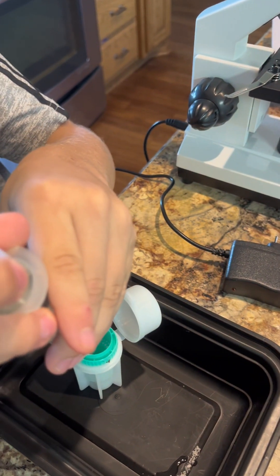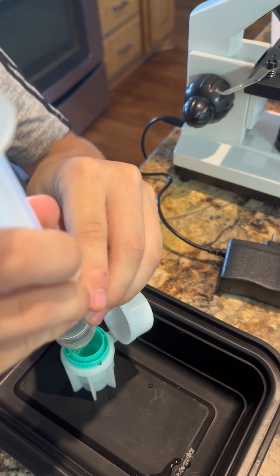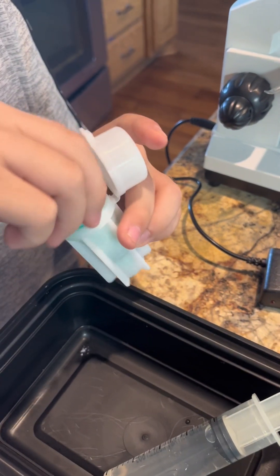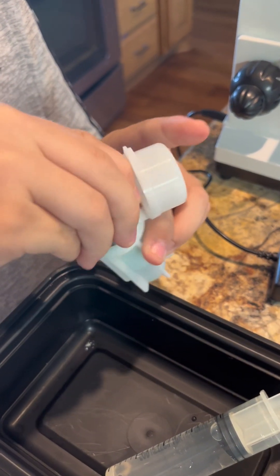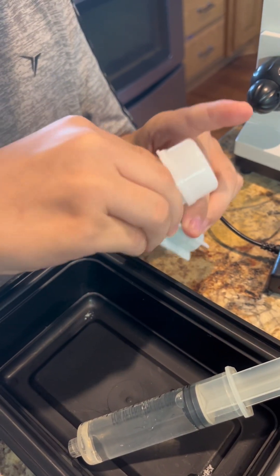Just a little bit to start. Then you start swirling it up — you agitate it around. That basically loosens things up so that if there are any eggs in that poop, they can float to the top.